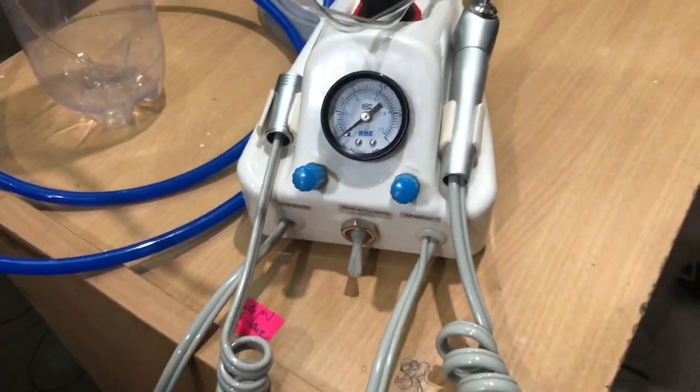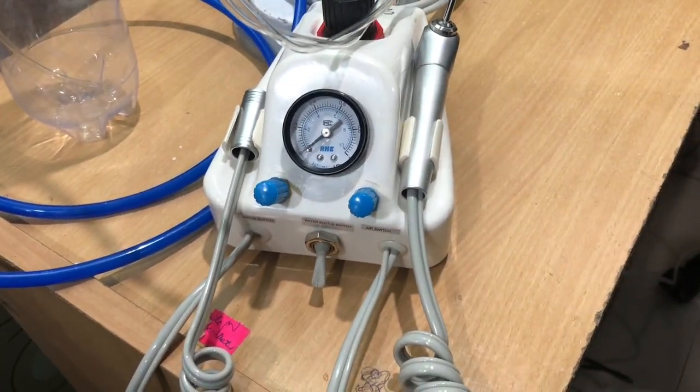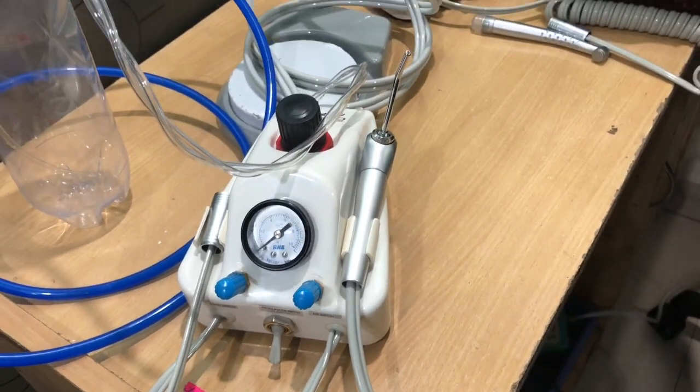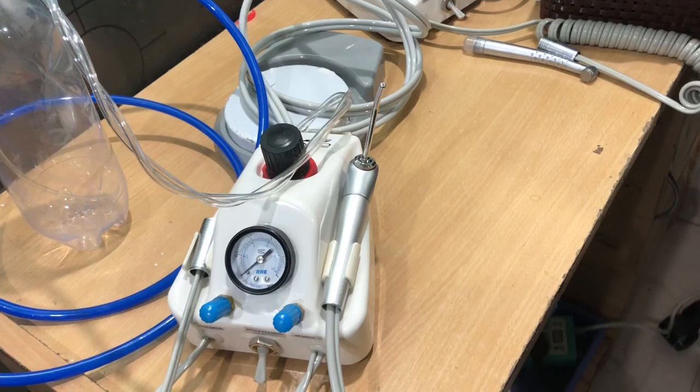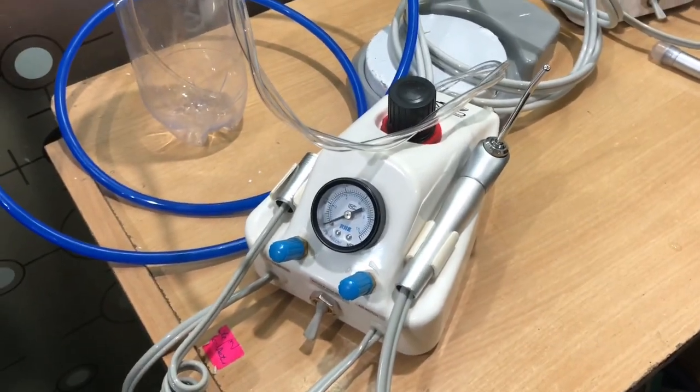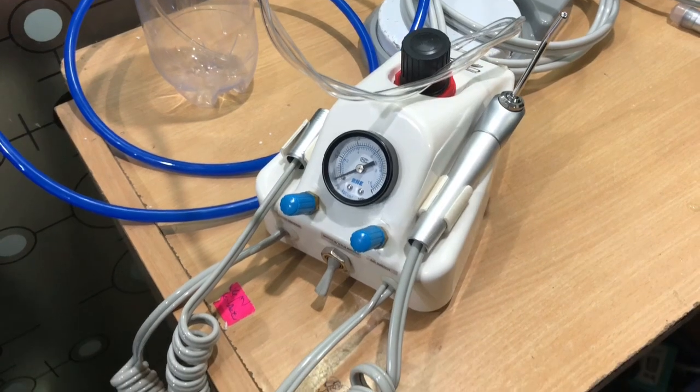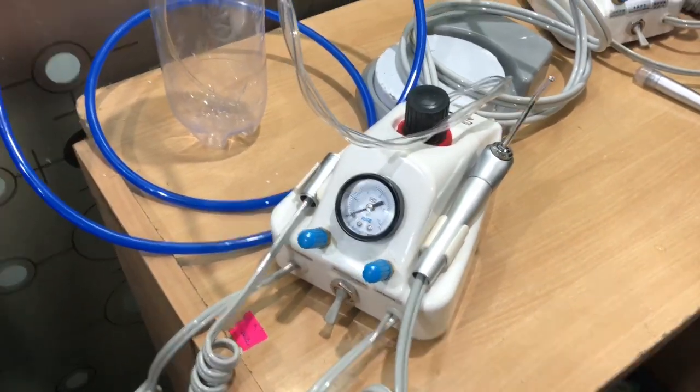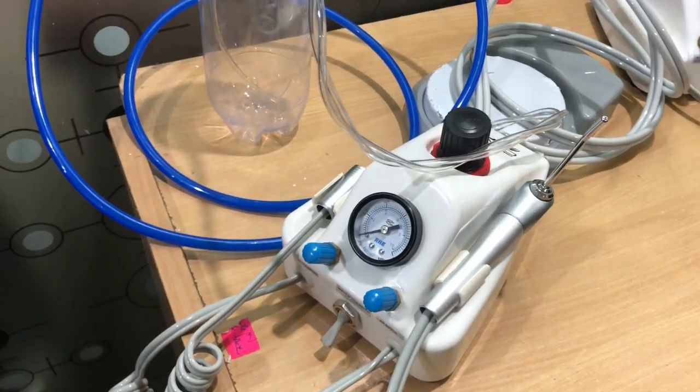So let me show you how to place this in your compressor. You don't need a dental chair for this. Generally, it is used where you are training some younger generation how to do the cavity preparation and you don't need any dental chair.